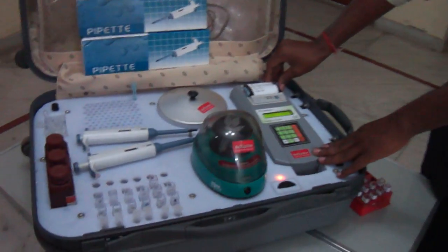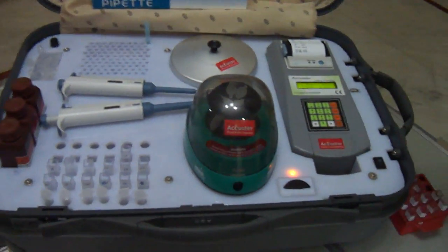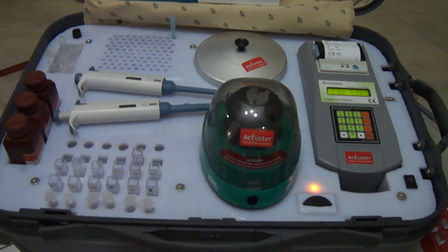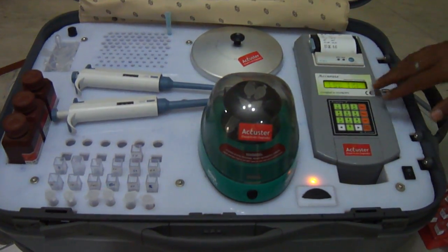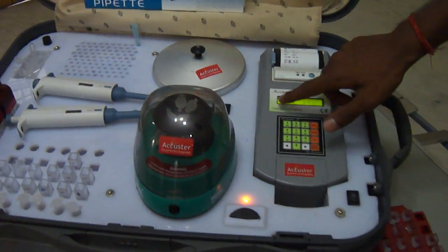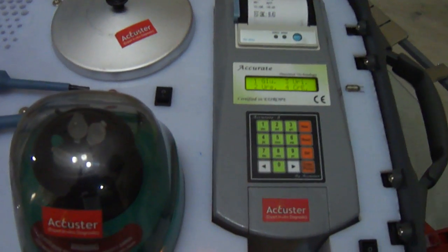This is our complete analyzer in which you can perform all 22 parameters of blood test. You can see the parameters of the test by scrolling the key. Here you can see all the test names.